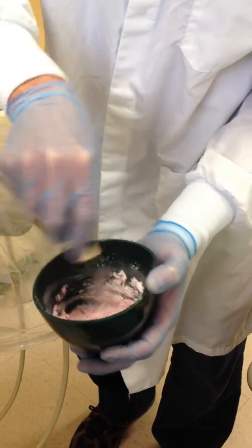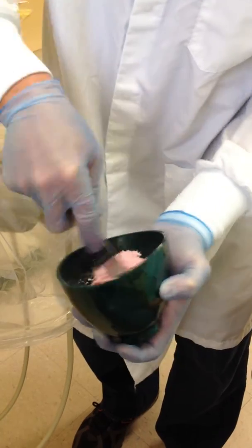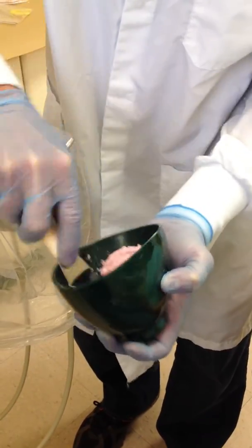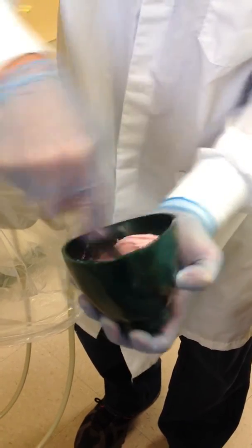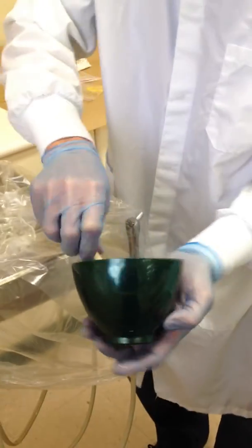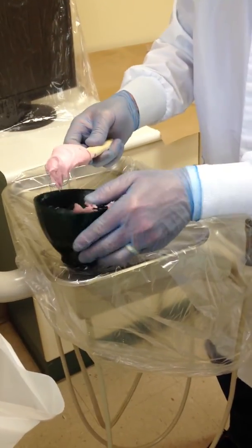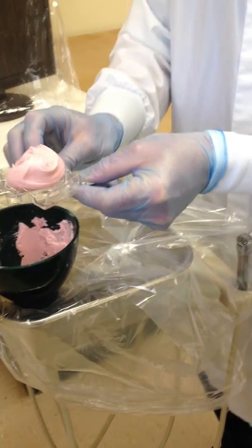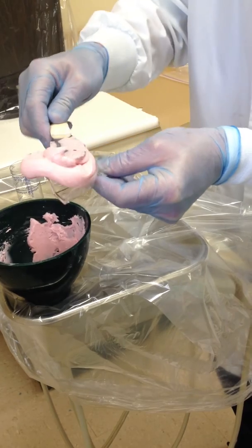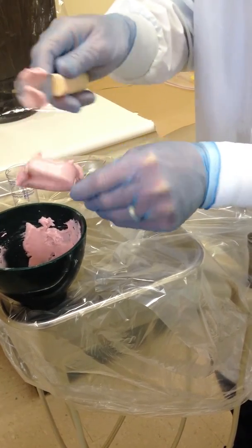Once we are fully incorporated, we will mix more violently, using the side of the bowl to eliminate any air bubbles. Next, gathering all the material together by swooping along the side of the bowl, we will fill our tray — again, so that we don't have any air bubbles in.